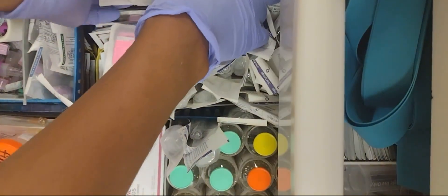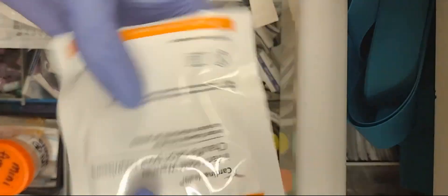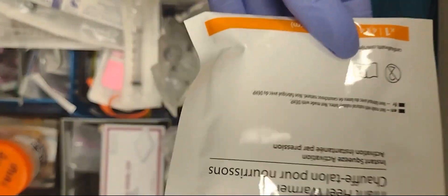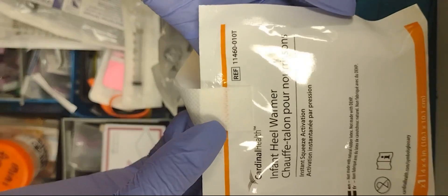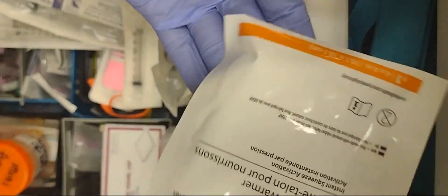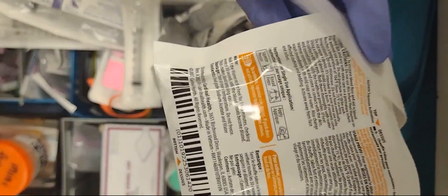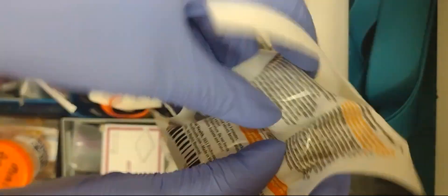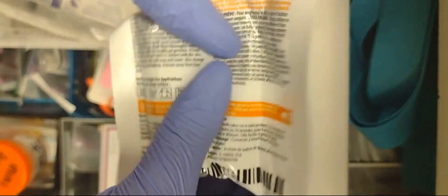So we also have these heel warmers here on the side. Let me get one of those out. Here's a heel warmer. I also use them for when a patient is cold, because if their body is cold, it makes it easier for the vein to collapse. So all you do with these is you just squeeze it—sometimes it's a little hard, but you have to squeeze it and then you activate the heat. And that's it. Ball it up in your hand and squeeze it like so. I'm not going to do this one.